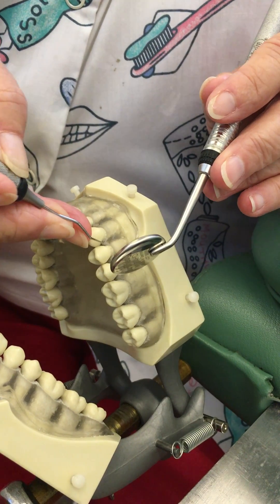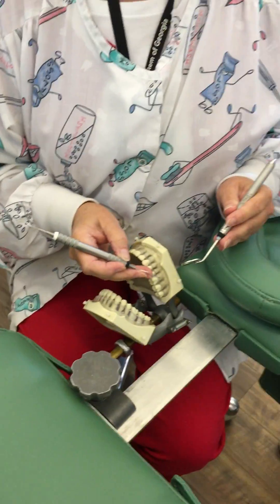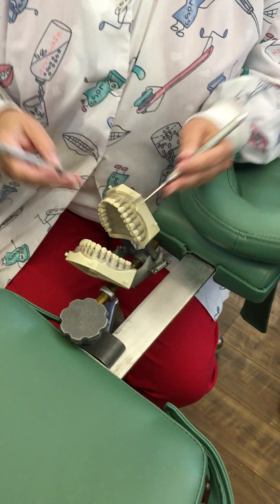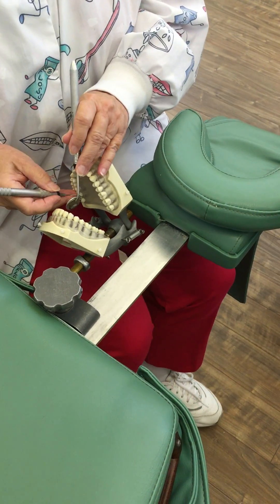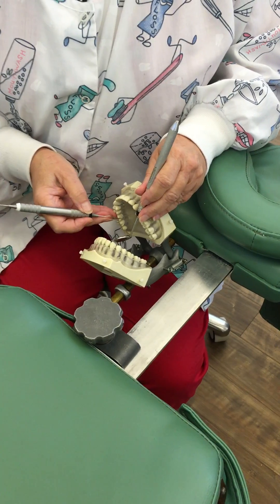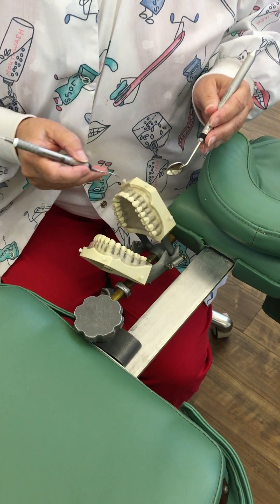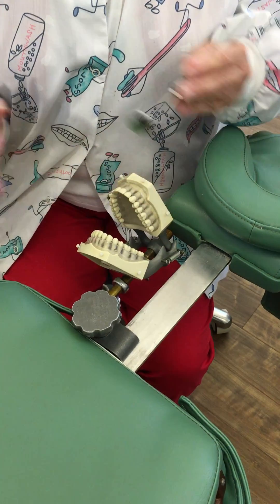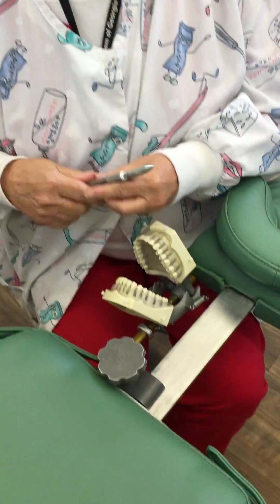Shoulders were down throughout areas three and four. The mannequin — the patient — should be tilted and turned towards you. You are at the away position or 11:30; you can be between 9 and 11:30, so wherever you feel good. 11:30 feels better to me because I get a better eyeball view in my mirror. For areas one and two you kind of move your mannequin as needed; for areas three and four the mannequin is turned towards you and you look in your mirror to see what you need to see.